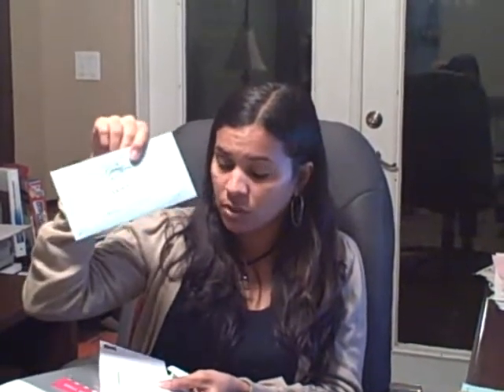Inside here you're also going to have a blue confidential bar-coded envelope. This is where you're going to place the two cotton swabs after you're done with your cheeks. You're going to place them inside this envelope, and that's going to go inside this other envelope which is already addressed and stamped, and it's going to go to GeneLink. Inside this envelope you also have a confidential client form. You fill this out, and you have a 1-800 number to call to register your product and your DNA sample — essentially giving them a heads up that it's on its way. You also have the information and instructions about how to get it done. Once you get this done, you're ready to do your test.